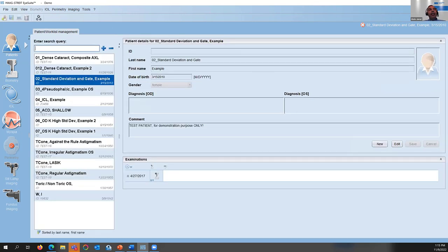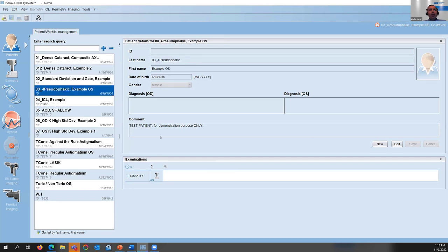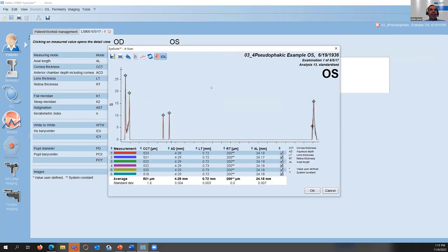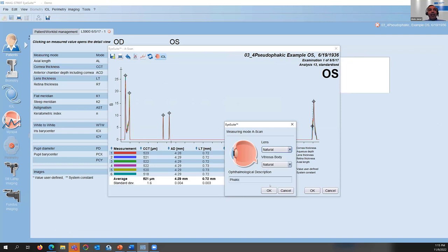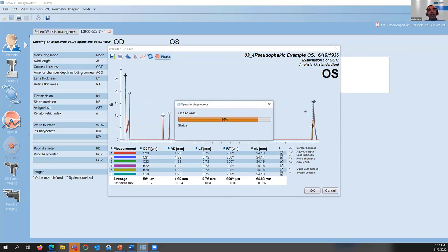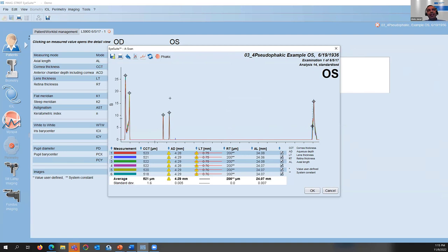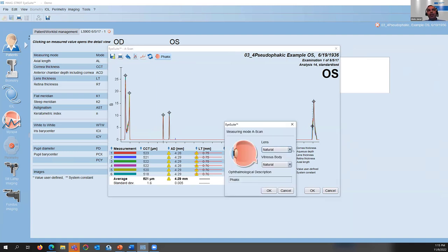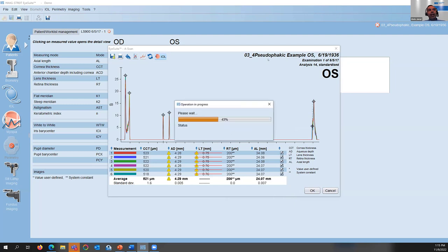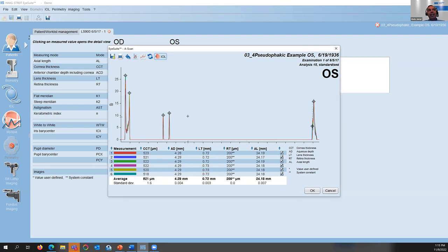If we have a known pathology or know what happened in the eye it's easier, but we can also modify or correct afterward. In this case, the user measured a pseudophakic eye. Looking at the scan, it's clear there is an IOL implanted. We can tell the software that there is an IOL, click OK, and the software will then read this eye as pseudophakic and detect the IOL thickness correctly.